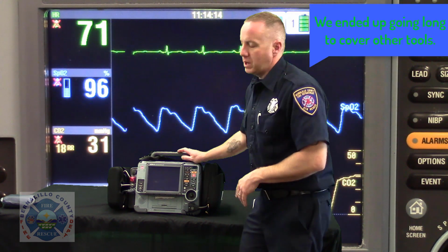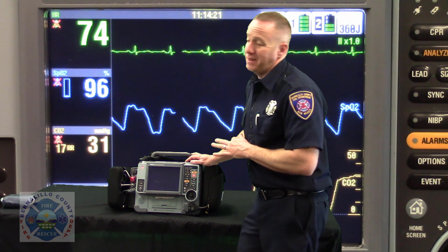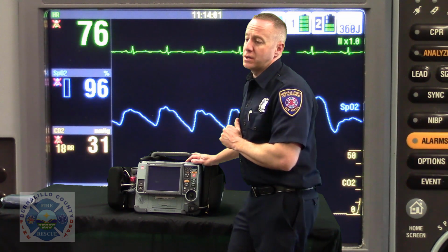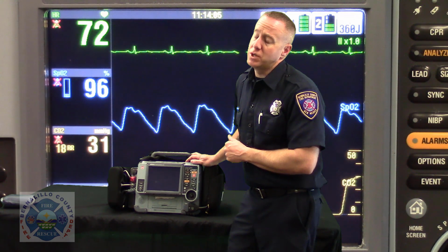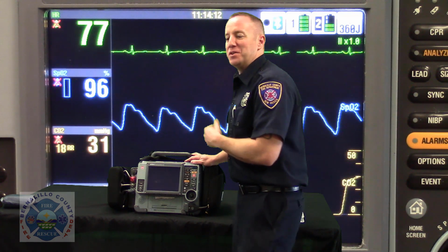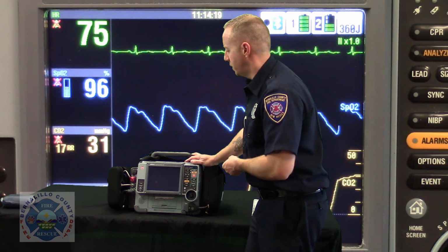So we're going to try to make this a little bit shorter, make it a little bit more operationally pertinent for how we're doing business currently. And again, keep in mind, this is not the gospel of the Lifepack15. This is our current uses and current practices, and anything's subject to change down the line. So this is only going to be as operationally pertinent as it is today versus 2019, 2020. New technologies, new techniques could emerge, so we'd be back in here trying to train you up on those.